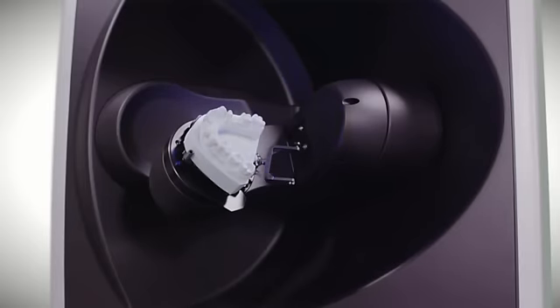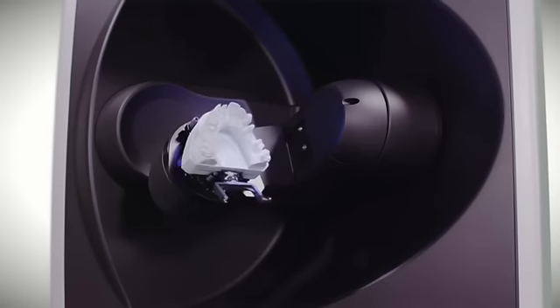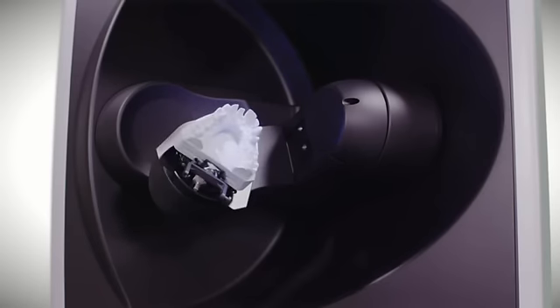This innovative scanning technology offers outstanding precision at less than 12 microns and impressive depth of field.